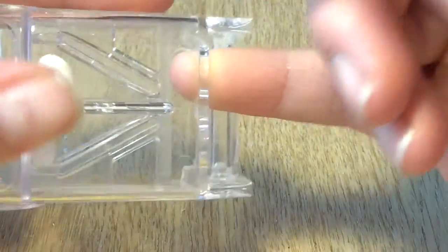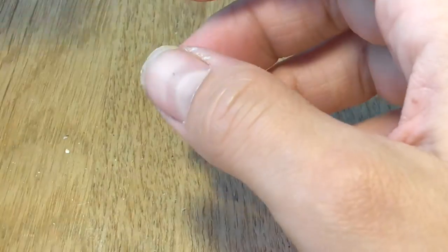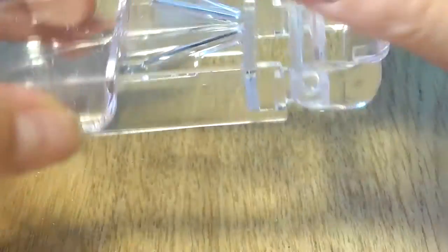She has to take multiple pills every day and some of them need to be cut in half and even in quarter. I didn't film it but this device can do it. You can cut a pill in half, then turn it and cut both pieces at the same time again.